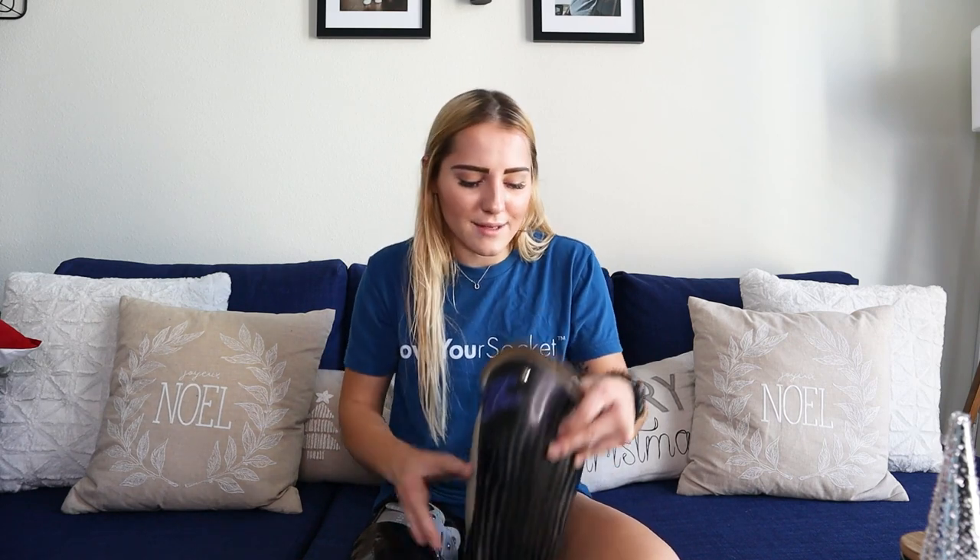When you sit on it, you're not really sitting on your leg — you're sitting in this thing. It would dig into me. I could not sit for more than about 30 minutes without my stump going numb. It was so frustrating. Long car drives sucked. I would just take my leg off because I couldn't do anything with it.